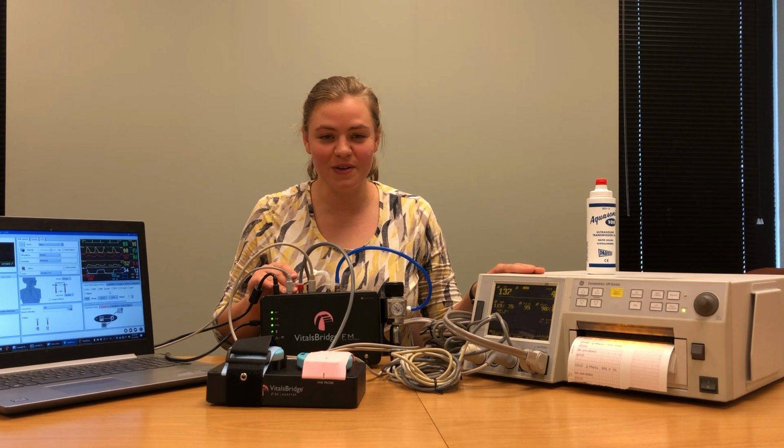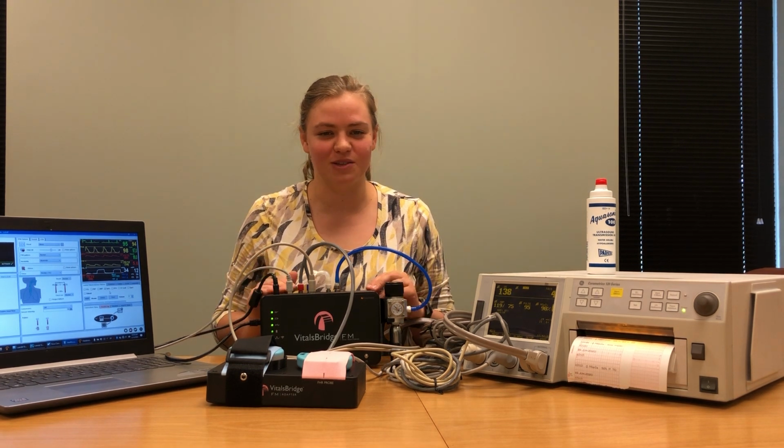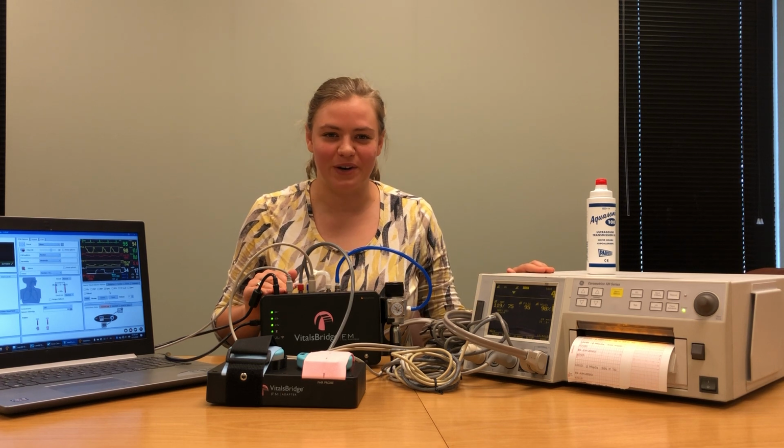I hope this was helpful and that you've learned how to connect your VitalsBridge FM to a fetal monitoring system.